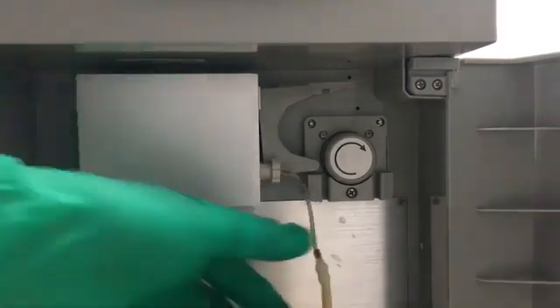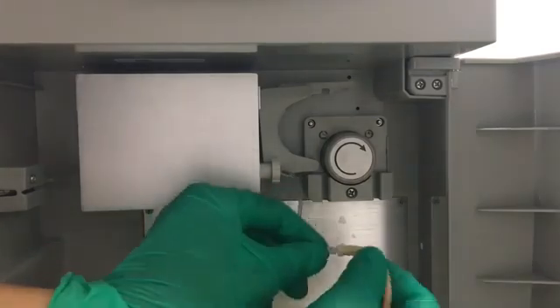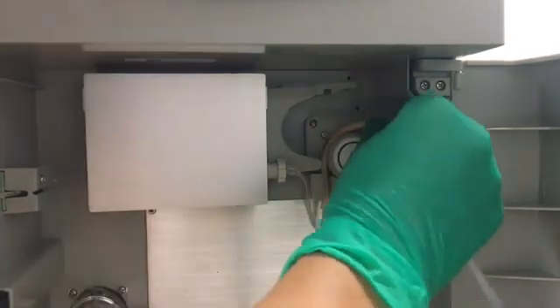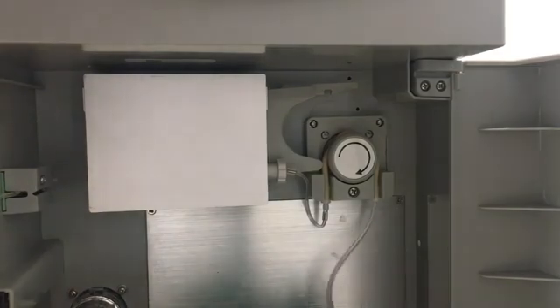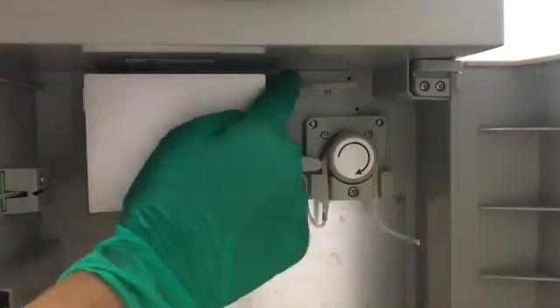We take the pump tube and give it some stretch and massage. Then we hold one end, loop it around the tube, and fix the other end. Then we put the tube through the hole and close it.